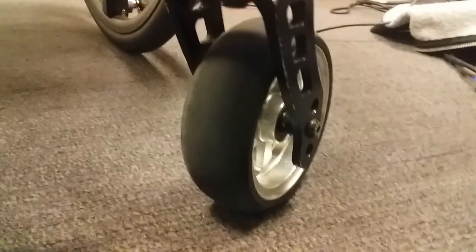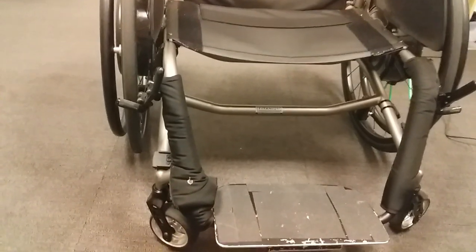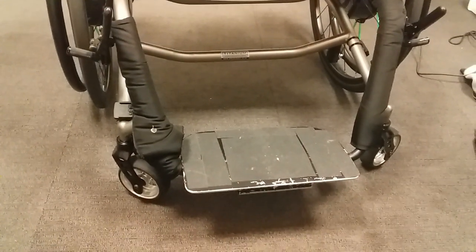As you can see the foot plate is a lot higher than most people's foot plates, and I've got I think four inch casters. I measured these casters the other day because this one here has been bent — you probably won't be able to see it but I can. I must have hit something really hard and I'm having a little bit of difficulty wheeling it. Also, hair keeps getting in behind there — a lot of hair. I had to get the scissors out today and cut it away.